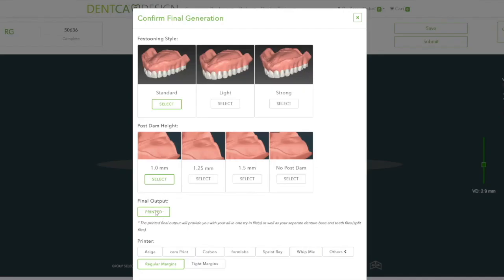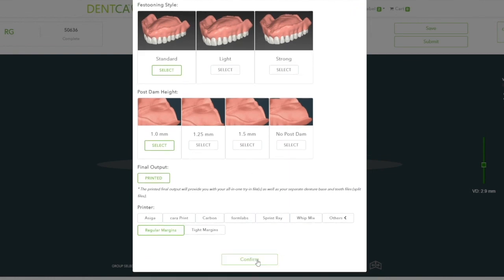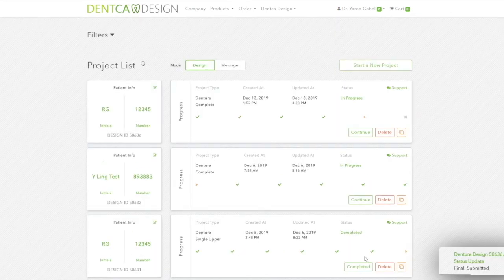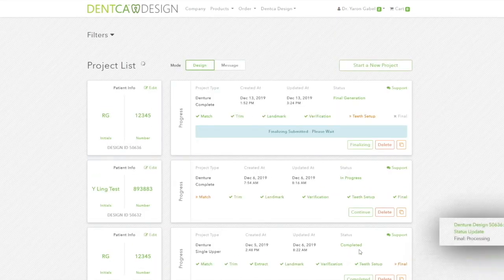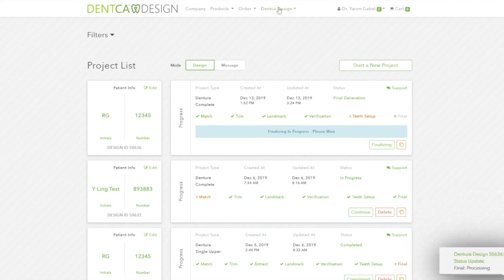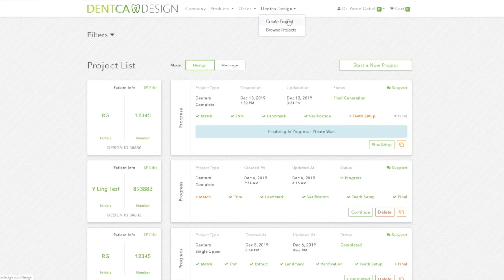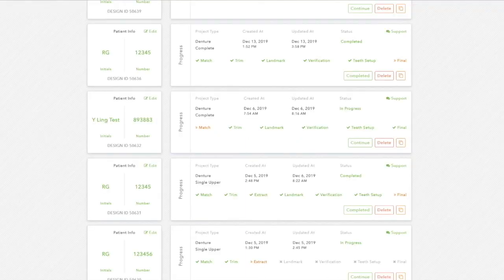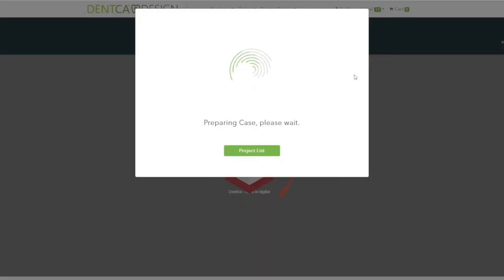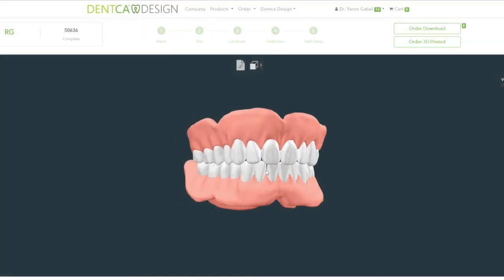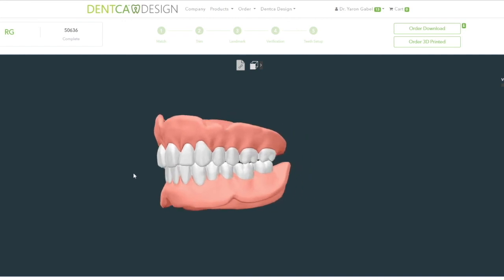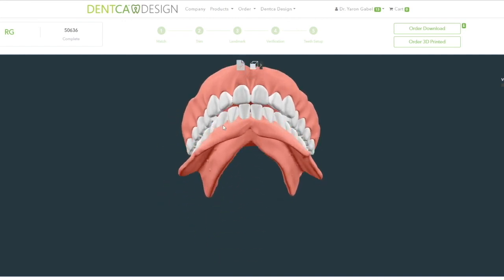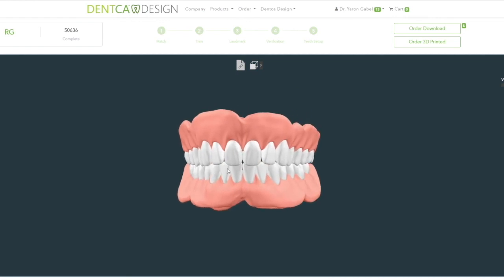After a final gum and post-dam confirmation is made, the final generation process will begin. This will take approximately 30 minutes to 1 hour. Since this is a web-based software, there is no need to wait for generation to complete before starting a new design — as soon as you click Submit to Final, you may start a new project. Once the final generation is done, the status of the case will change to complete, and you will receive a notification email. Click on the completed button to view the final design. Please note that if the teeth are too close to the gum area, such as in cases with a short lip length, the gums might cover a portion of the teeth as minimal denture base thickness must be achieved. The designs are optimized for 3D printing and the STL files can be downloaded as try-in, final dentures, or all files at the same time.